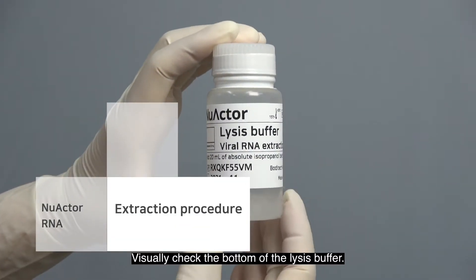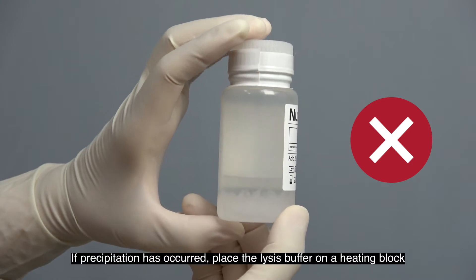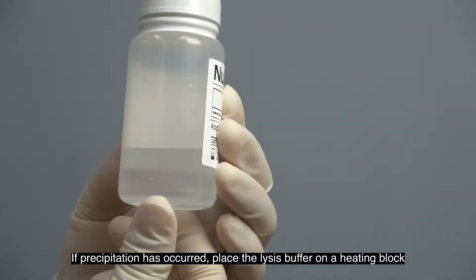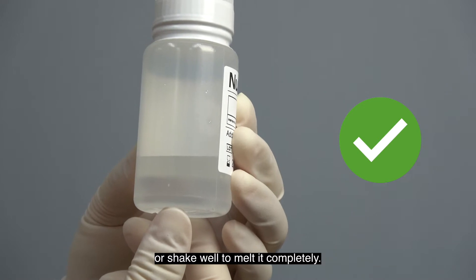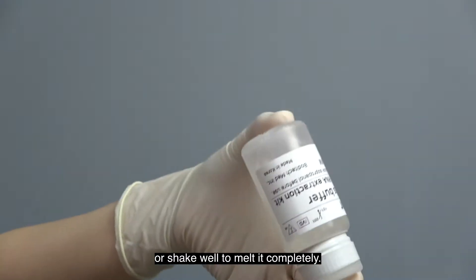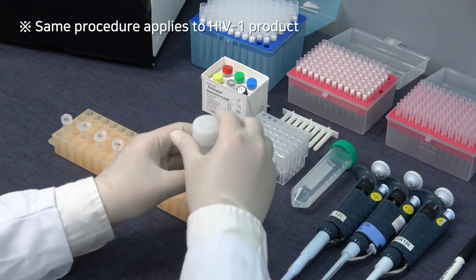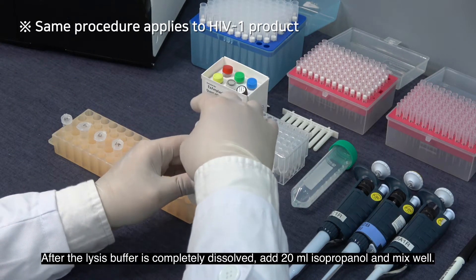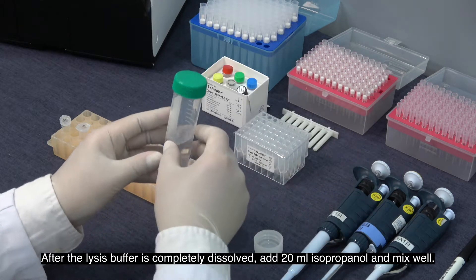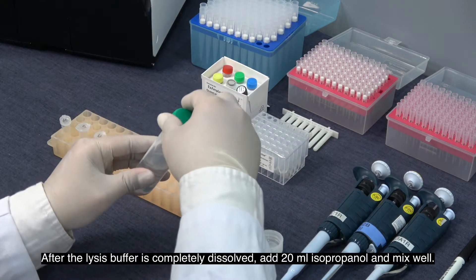Visually check the bottom of the lysis buffer. If precipitation has occurred, place the lysis buffer on a heating block or shake well to melt it completely. After the lysis buffer is completely dissolved, add 20 mL isopropanol and mix well.